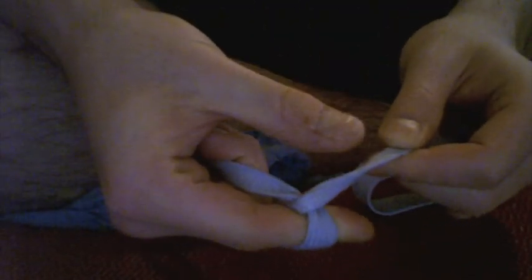The next throw is over your thumb. So instead of your index finger, you're coming over your thumb now with the C. You still have the C — you encase your thumb with the suture, come to the other side, clamp again, rotate through the loop, let go once you've clamped the other suture, throw it through to the other side and grab with the non-dominant hand. When coming down with the knot, push down on the knot with your index finger — that's very important. You're pulling with both hands but pushing down on the non-dominant hand suture string until you get to the bottom, on top of the knot. Make sure it's secure.